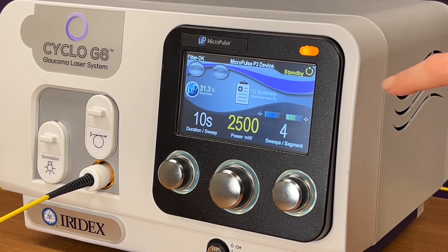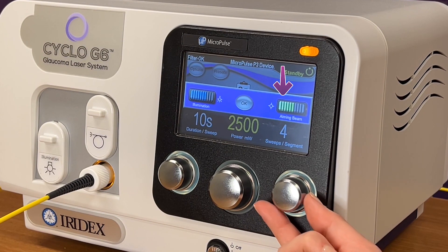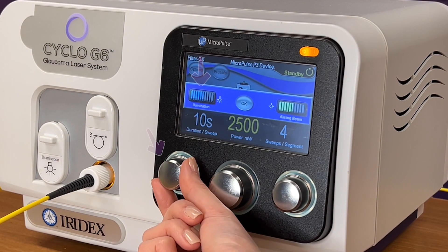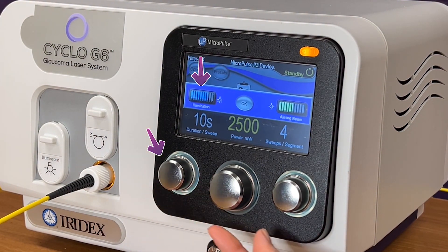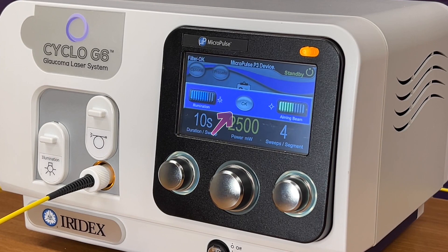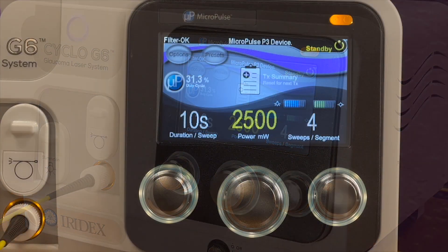These icons represent illumination and aiming beam adjustments. Simply press the icons and use the right control knob to adjust the aiming beam illumination. Use the left control knob to adjust the illumination for when the Iridex Illuminating G-Probe device is connected to the Cyclo-G6 laser. Select OK to return to the standby screen.